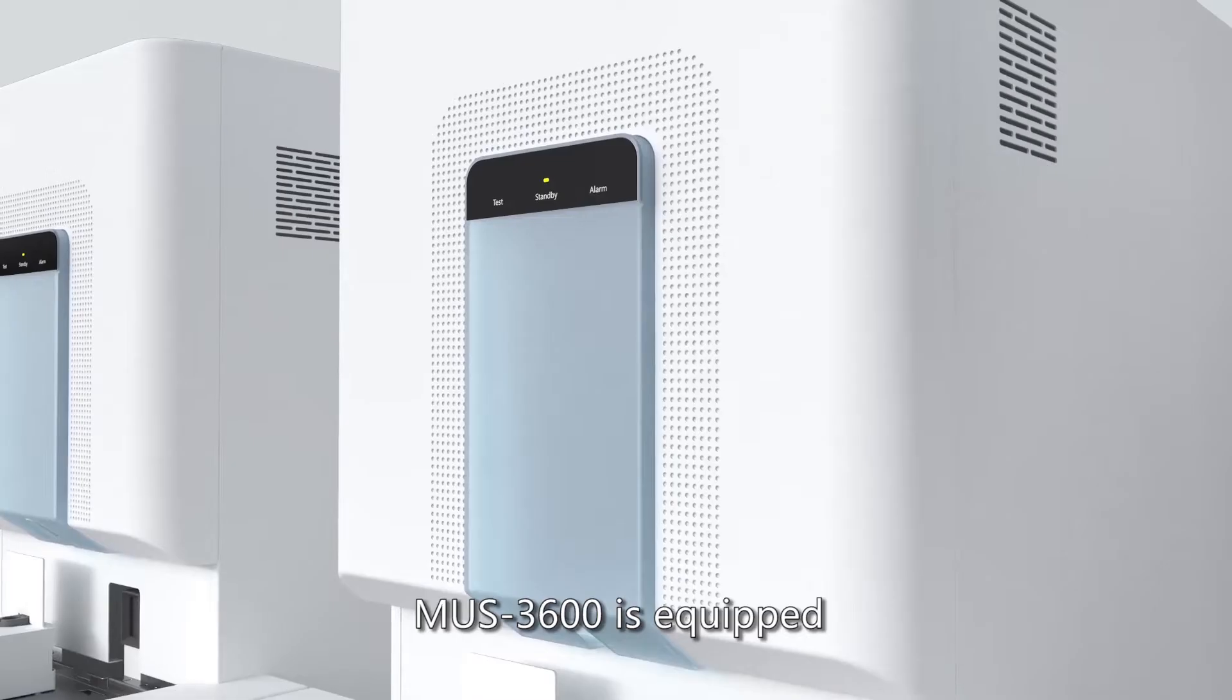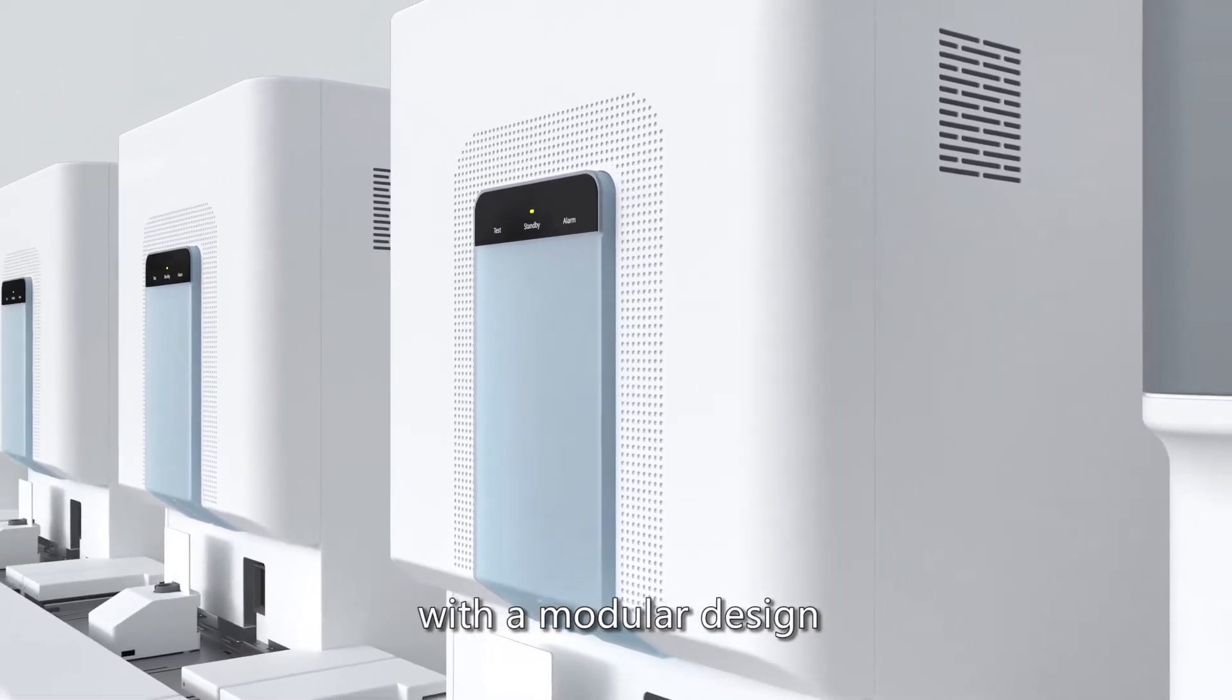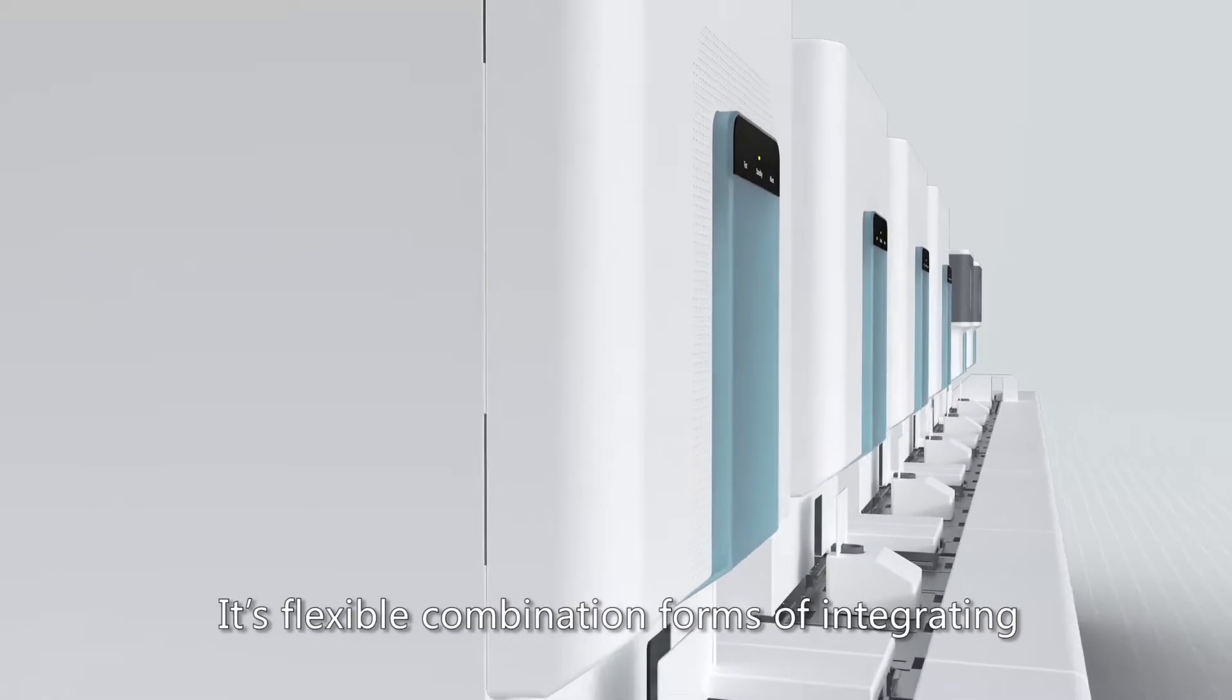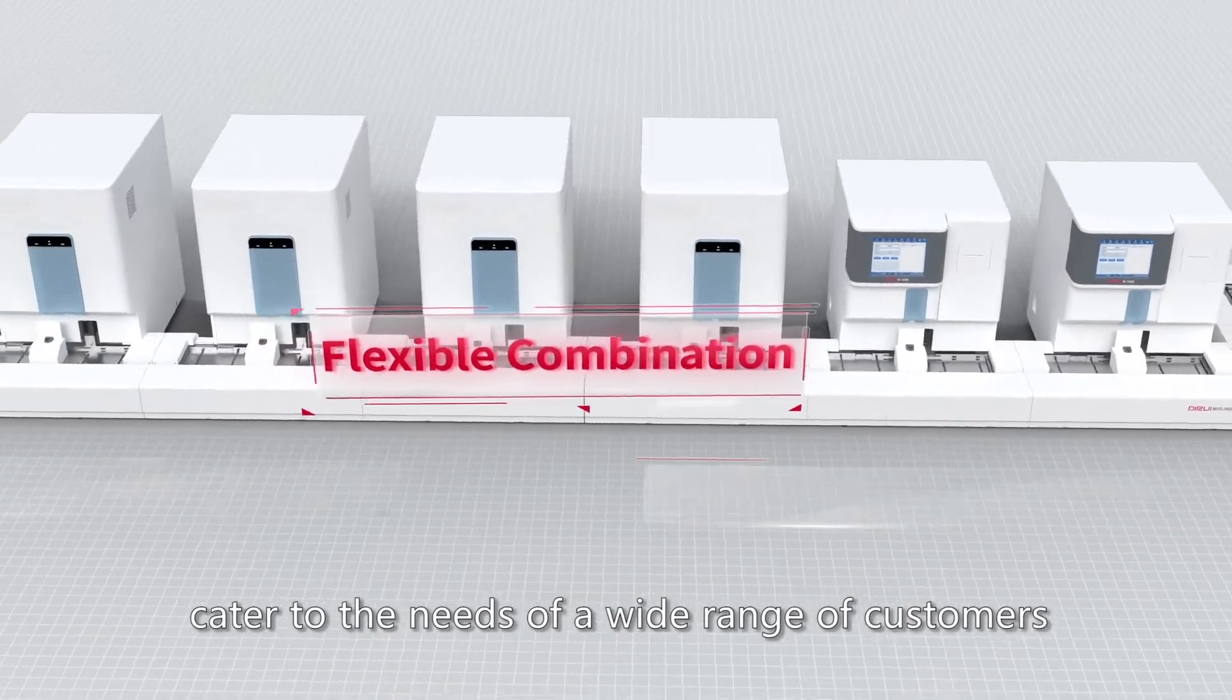MUS3600 is equipped with a flexible modular design. Its flexible combination forms of integrating the dry chemistry and the formed element modules cater to the needs of a wide range of customers.